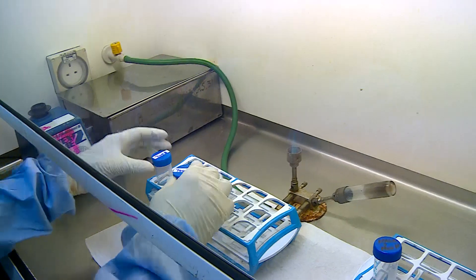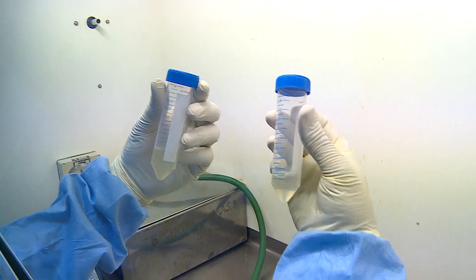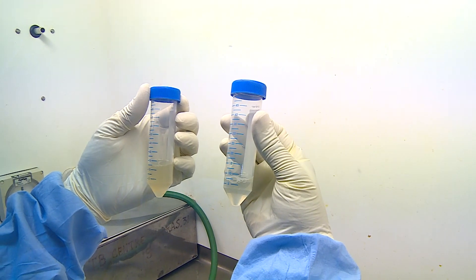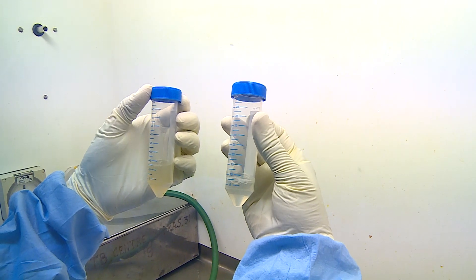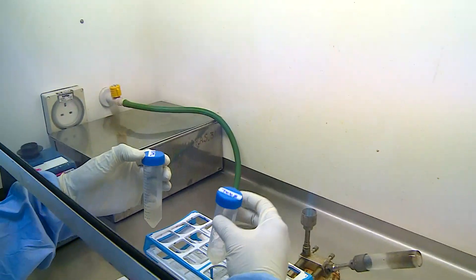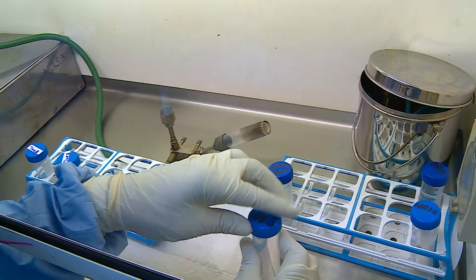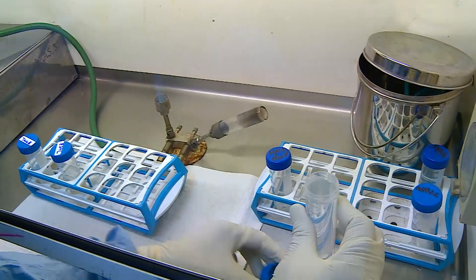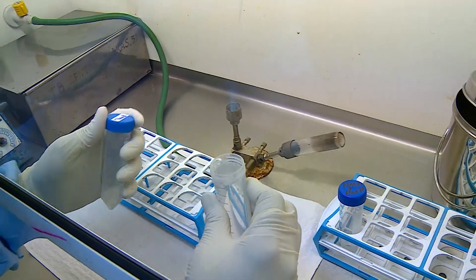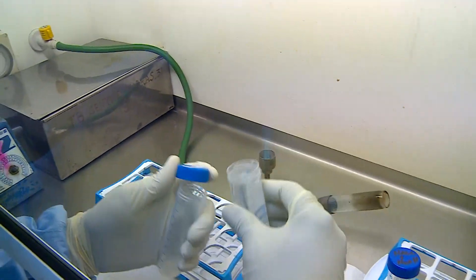The samples are now completely homogenized. They are neutralized by addition of phosphate buffered saline up to the 50 ml mark, which neutralizes the action of sodium hydroxide.